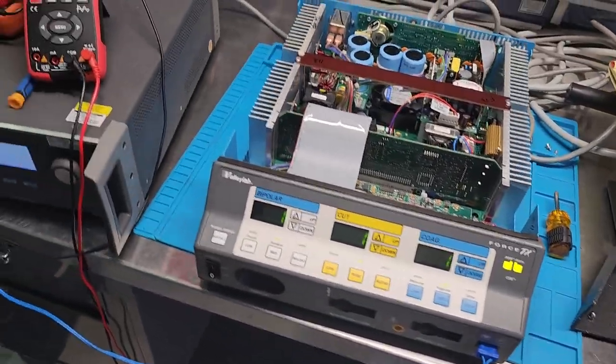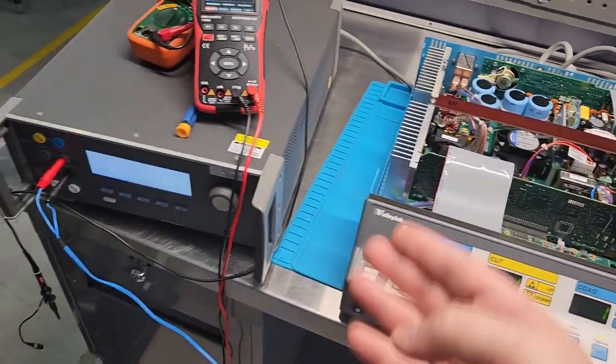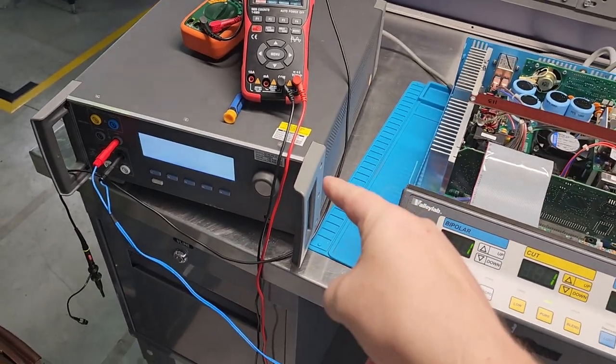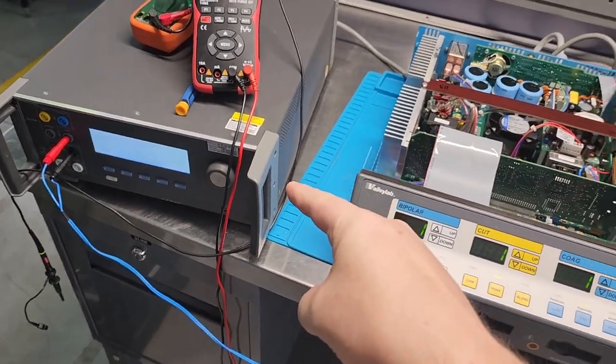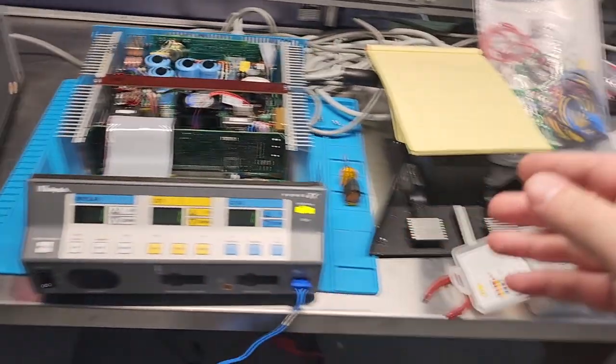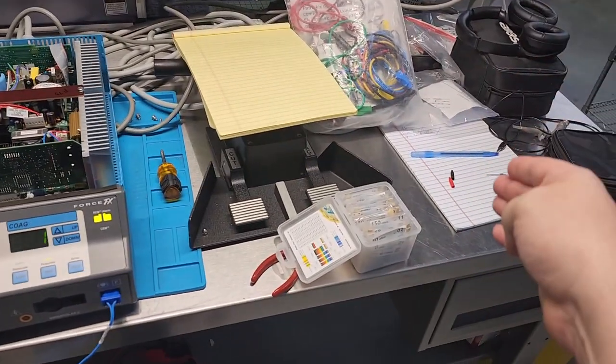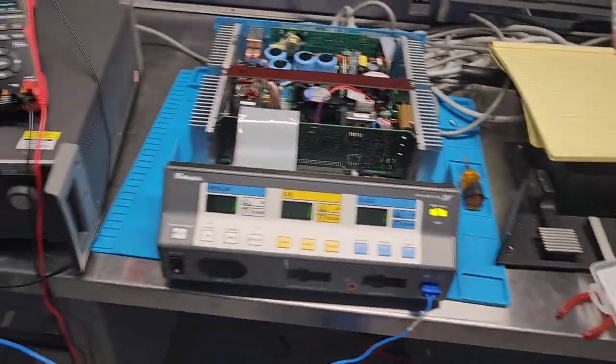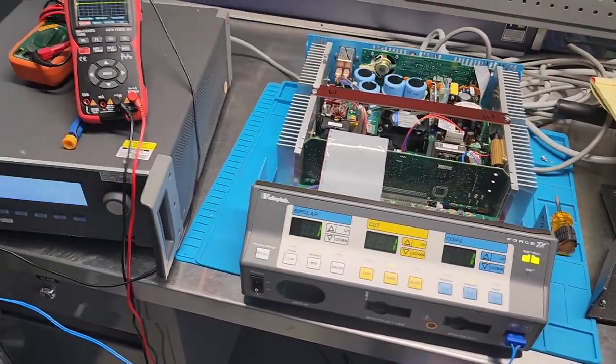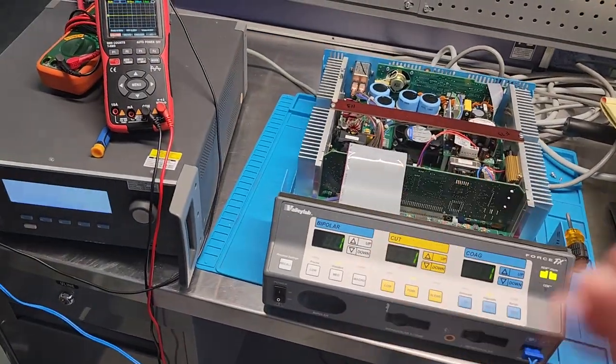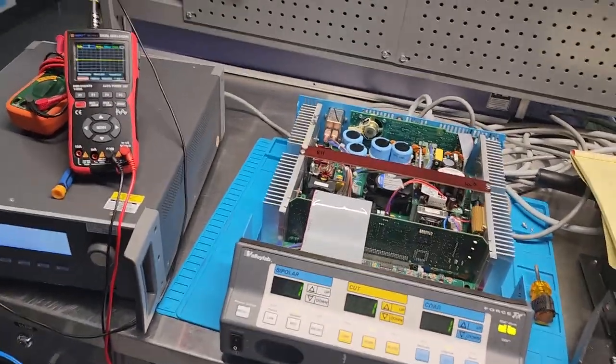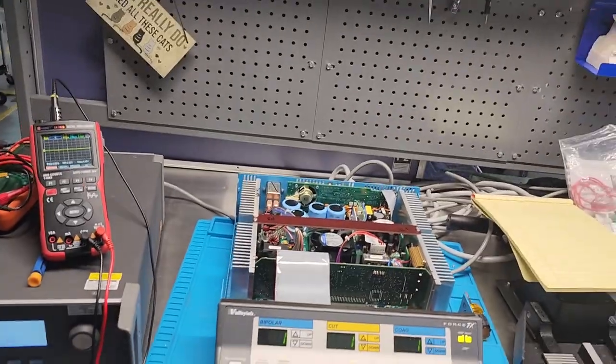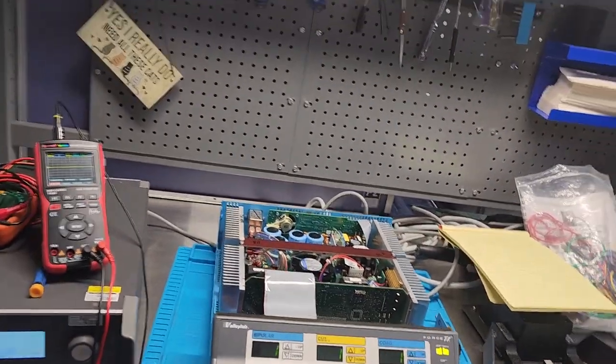And you know, the way I'm going to work is I'll check this guy with my multimeter first. And if that doesn't work, then I'm going to go with a known resistance value and see if it'll work then. But that's not how it was. So let's go ahead and run it through. I'll show you guys how I calibrate this beast.